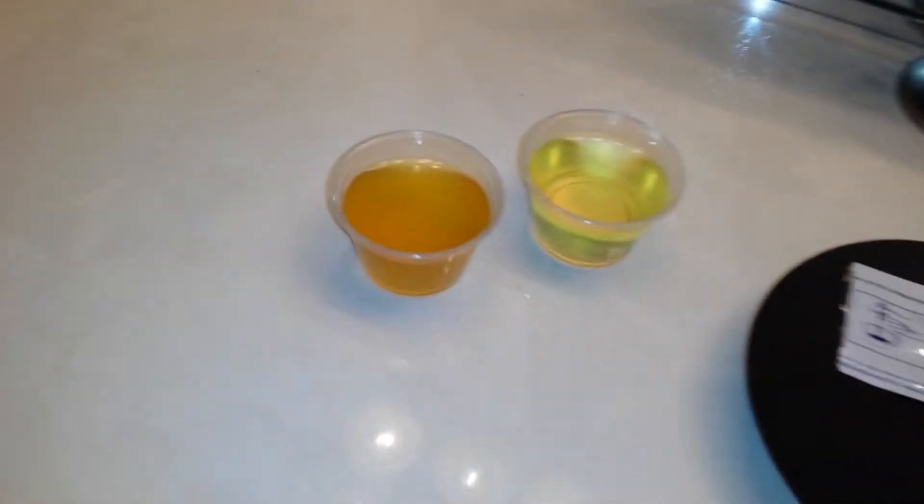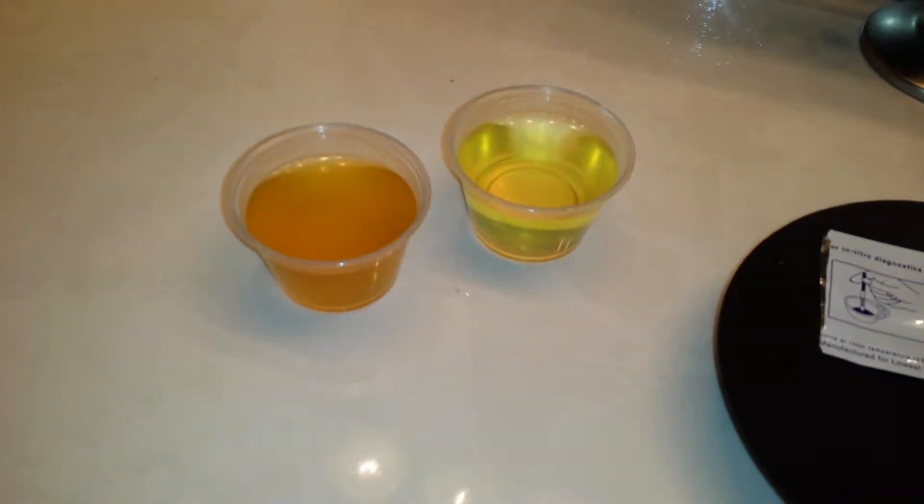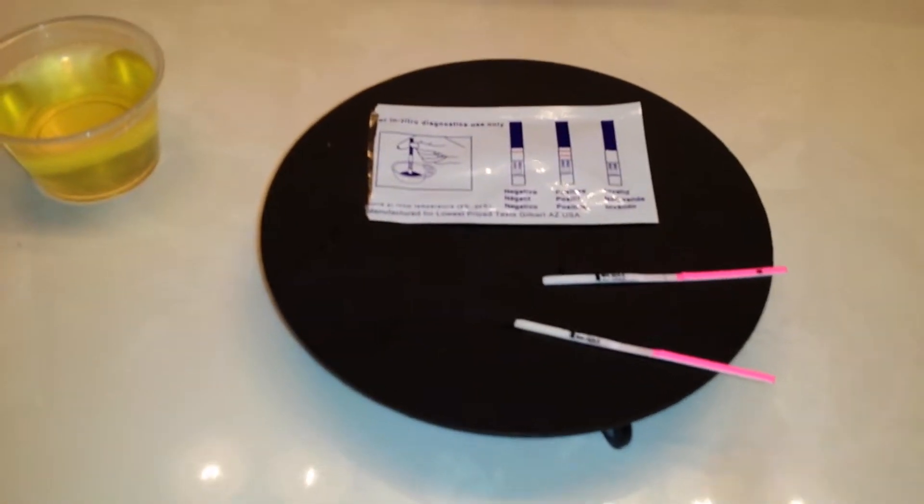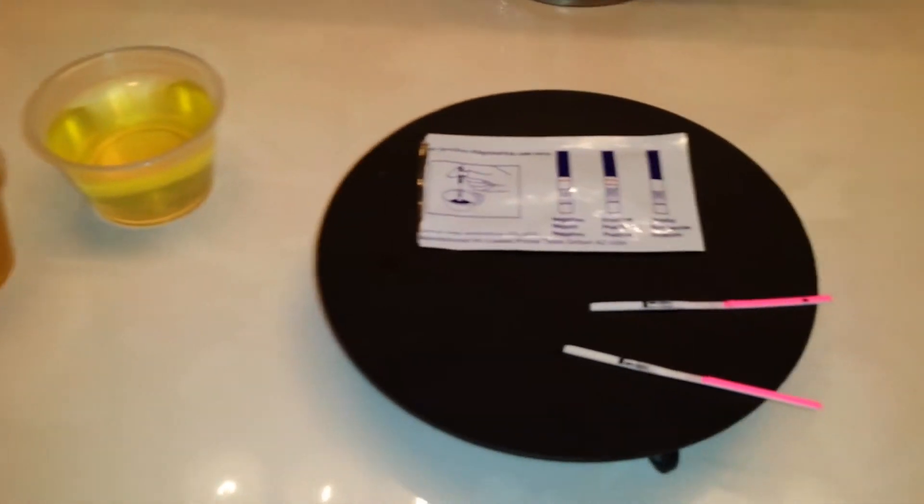We're also going to test the dilution and the concentration and see if even with that being said, both of the sticks being held for 10 seconds, if the one with the concentrated urine is going to come out a little bit darker than the one with the diluted urine.